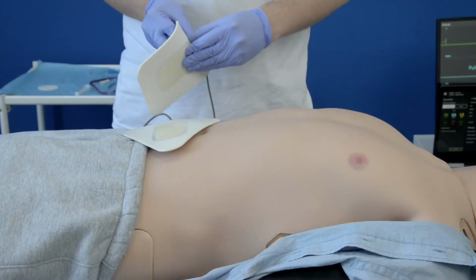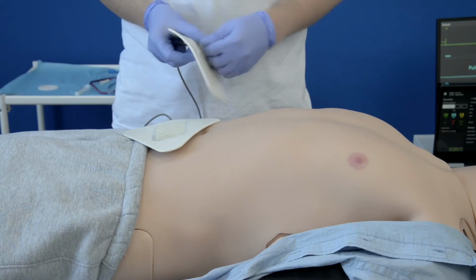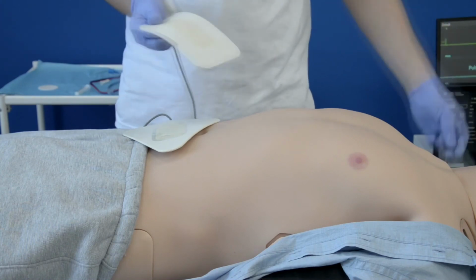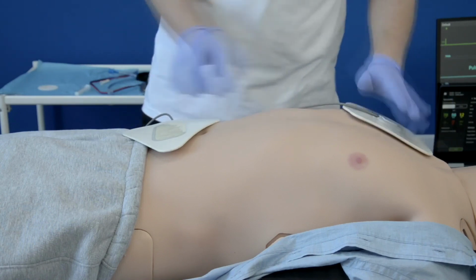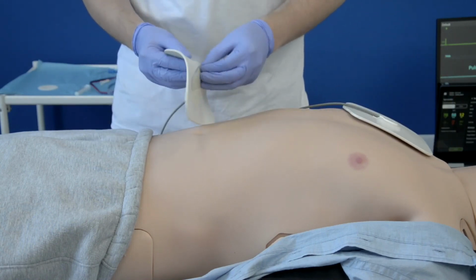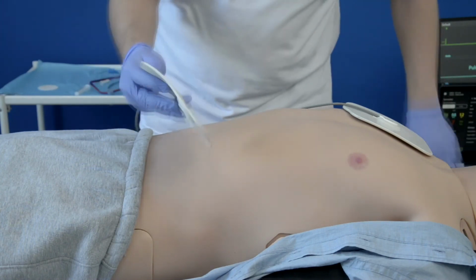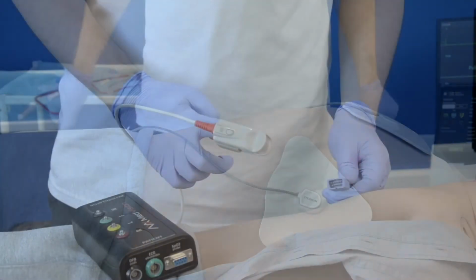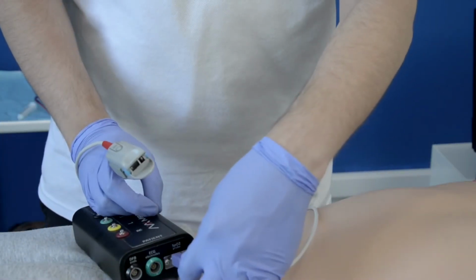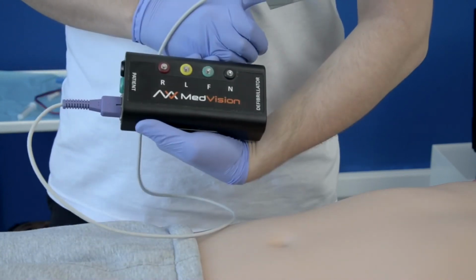For defibrillation, we provide these training pads, or we can adapt real ones for your training needs. The training ones have the gel pad material that can be removed and washed with water to be reused later. And naturally, there are sensors for correct electrode placement. SpO2 monitoring is supported with a real pulse oximeter, and there is a special port on our adapter for it.